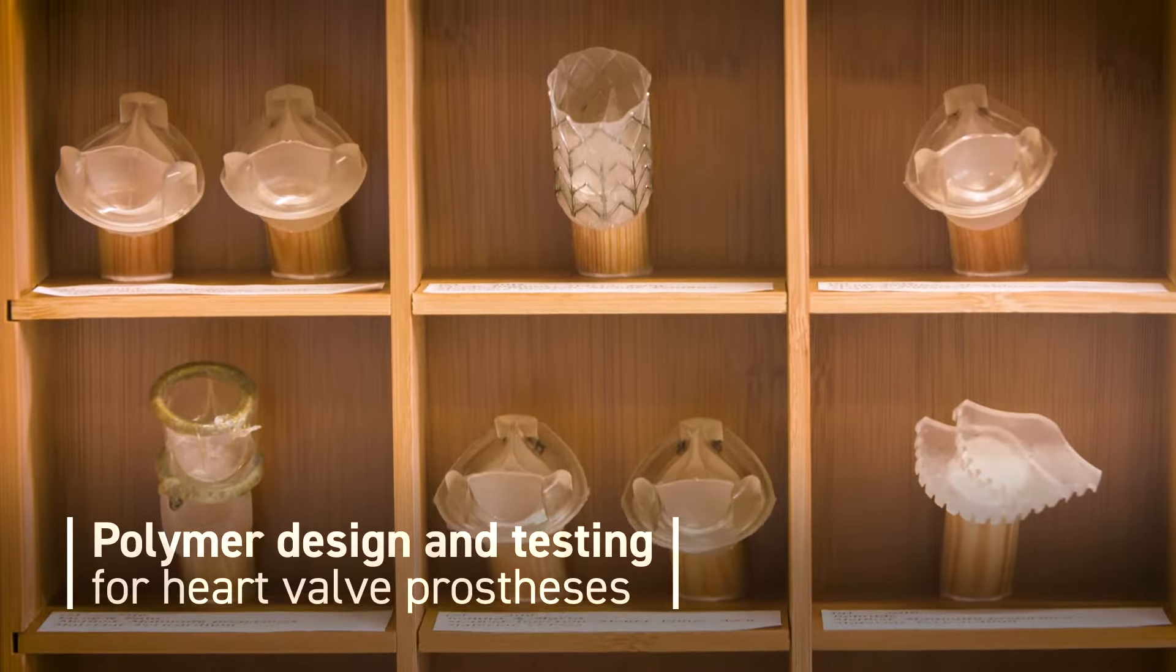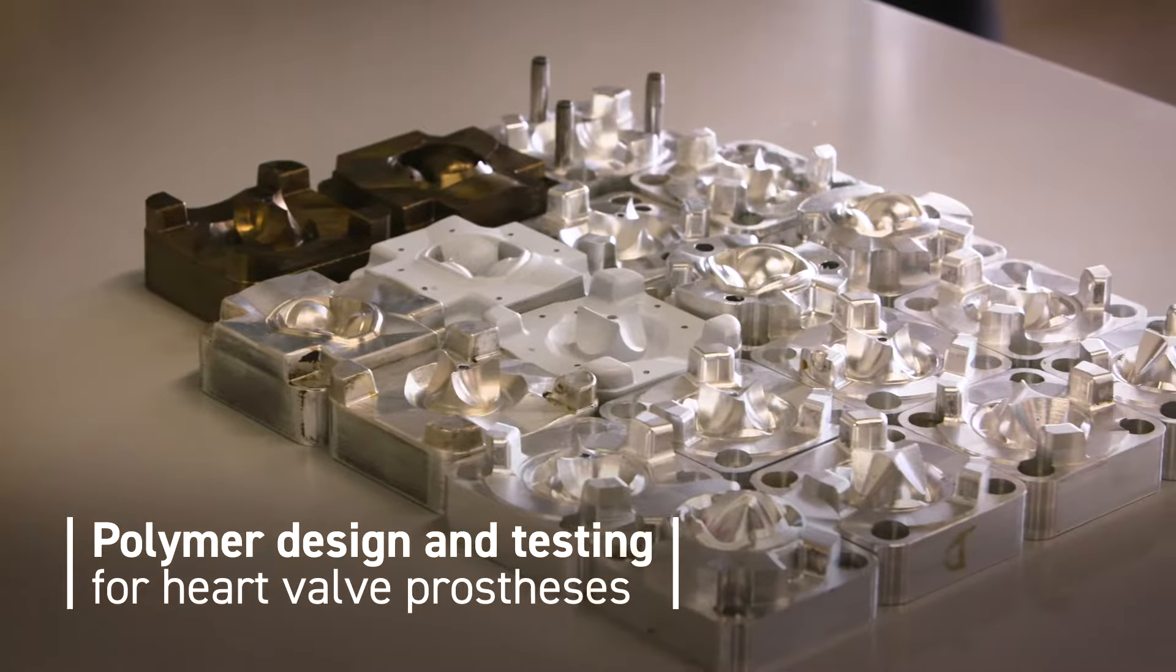We're developing a polymeric aortic heart valve because existing prostheses that are implanted suffer from the need for anticoagulation medication, and that is associated with complications and risk of bleeding.